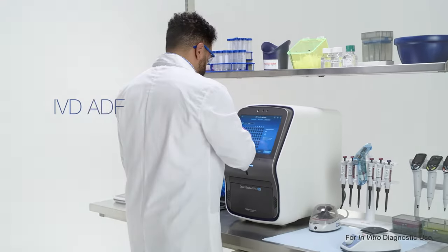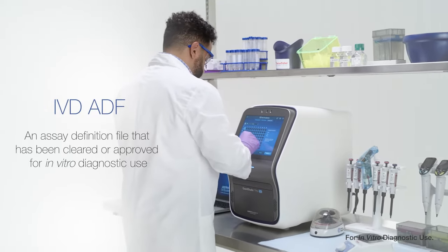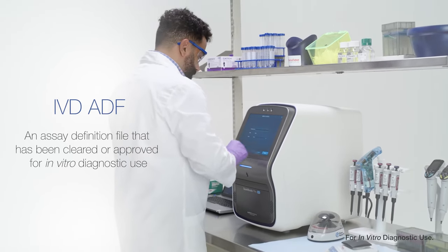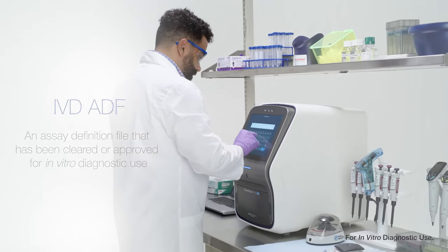An IVD ADF is an assay definition file that has been cleared or approved for in vitro diagnostic use.